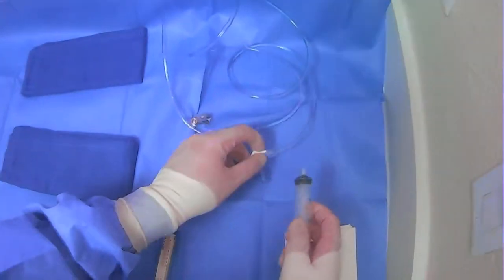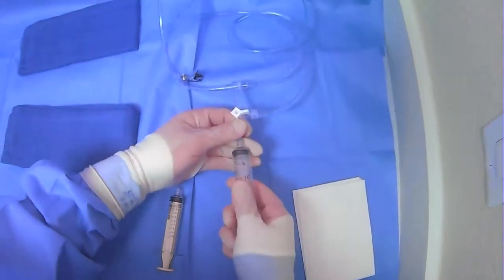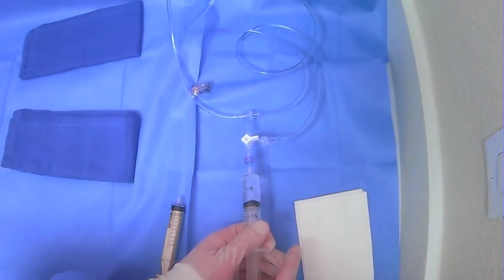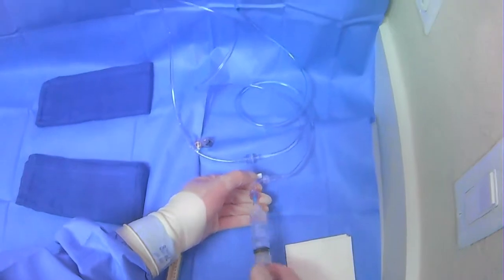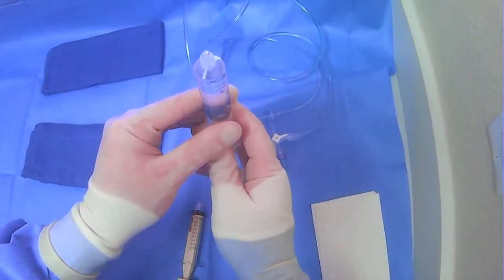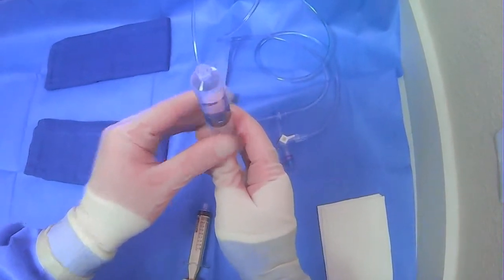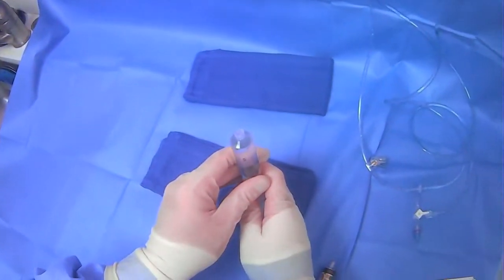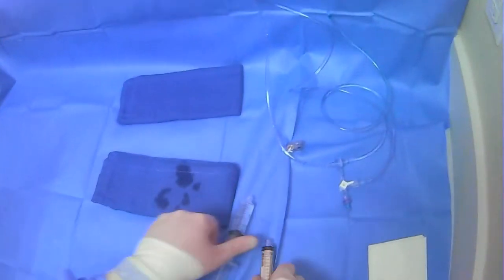At the start of a case we fill up all of our syringes with the appropriate contents. We draw back and we're drawing saline. We then push all the air out of the syringe, flushing it onto the towel here, making sure there's no air inside so we're not going to inject any air. And we have our saline prepared.